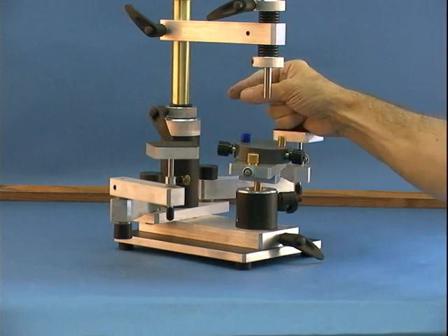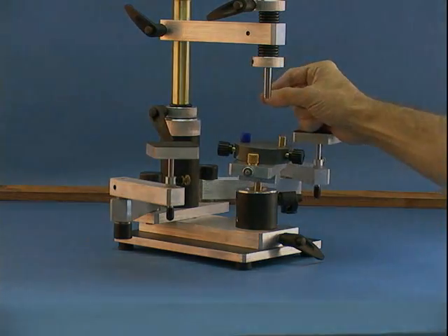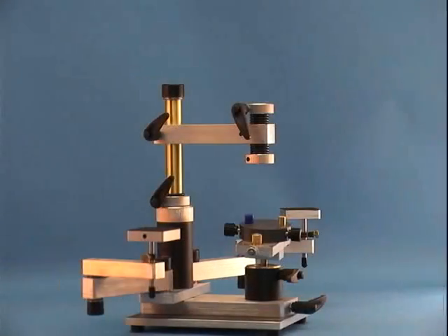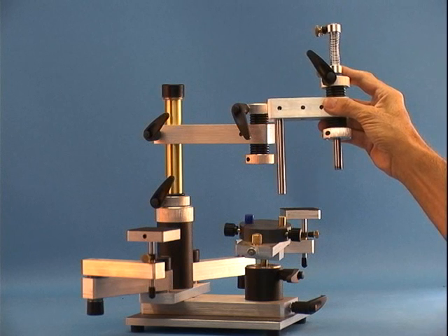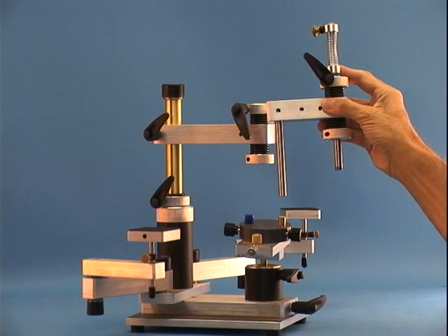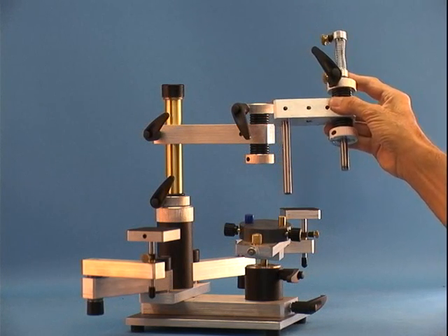The handrests are triple jointed and will follow or track the movement of the motor. Remove the motor shaft from the MX-5's primary arm. Next, we'll install the secondary jointed arm. This arm will be placed between the primary arm, the arm on the column, and the motor arm.